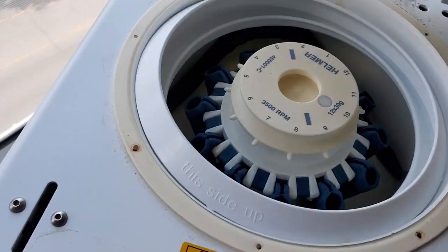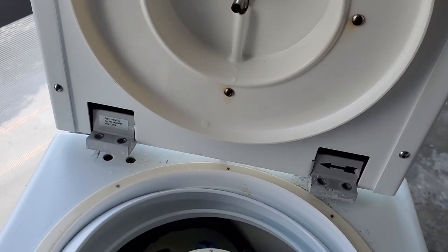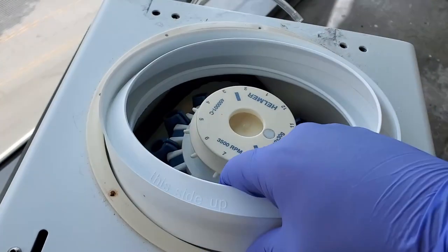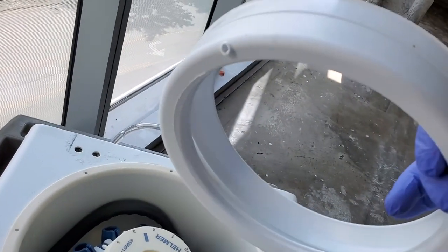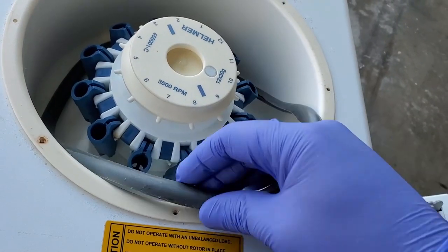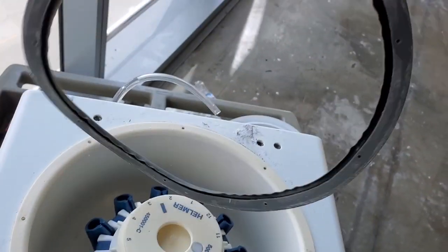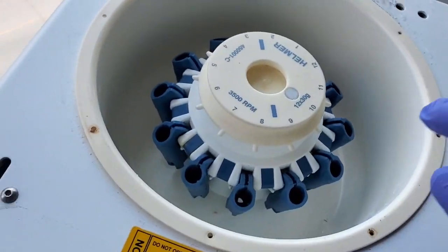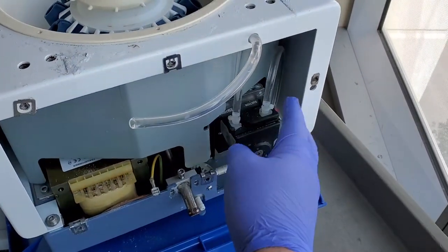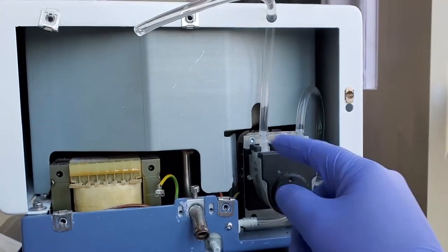Let's go into the anatomy of this device. First, I disconnect the lid — four screws, and it comes off. Mind you, there's a saline tube going to the lid. Then there's the separator ring or collection ring, which has a little tiny drain spout and just pulls out. Underneath is a silicone seal hiding smaller metric allen fasteners around the perimeter. Pull that off, then remove the rear panel — four perimeter screws. The door has a quarter-turn and opens up to expose your peristaltic pump, which adds the saline to the blood cells.